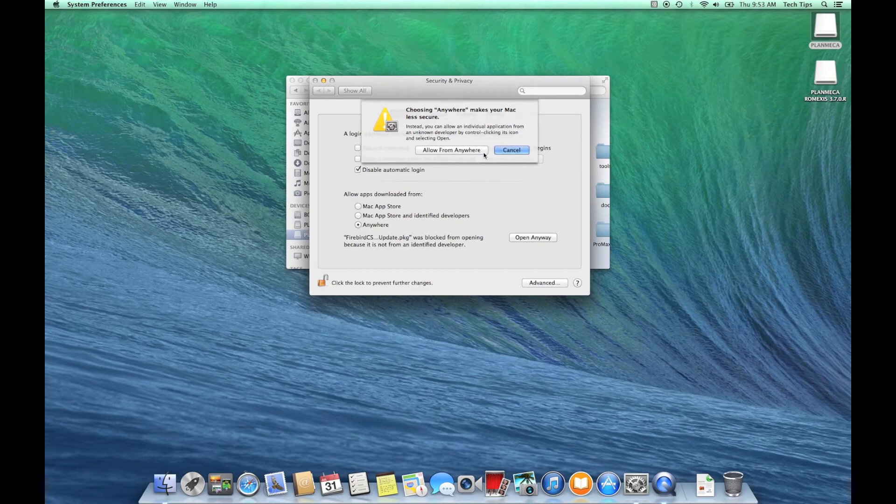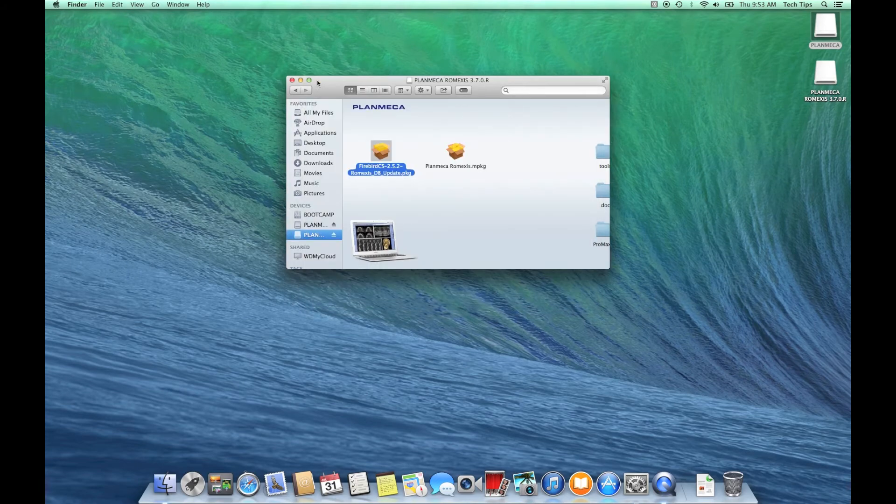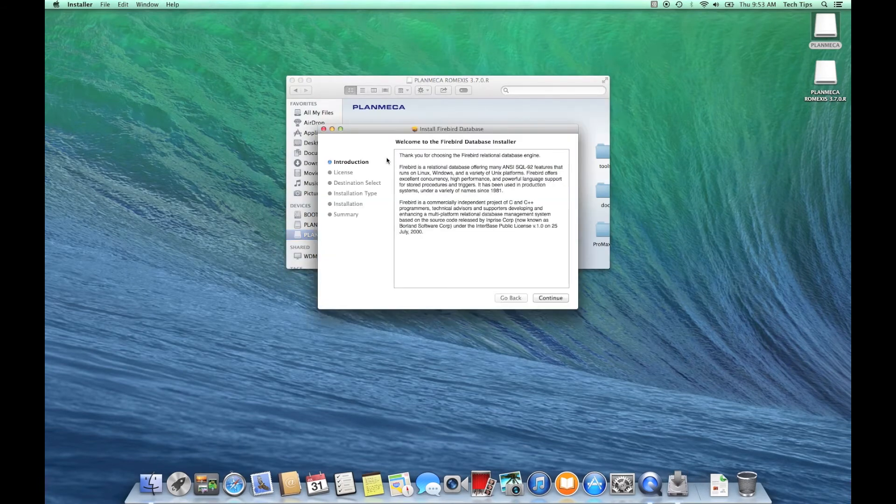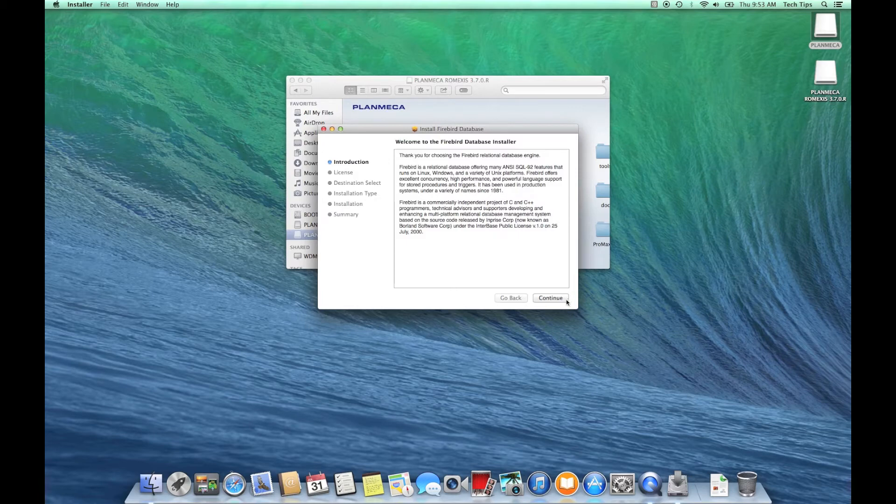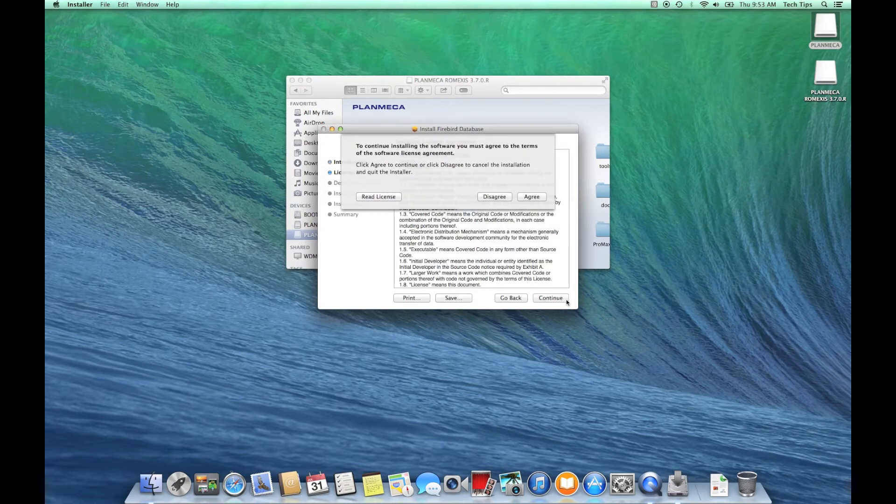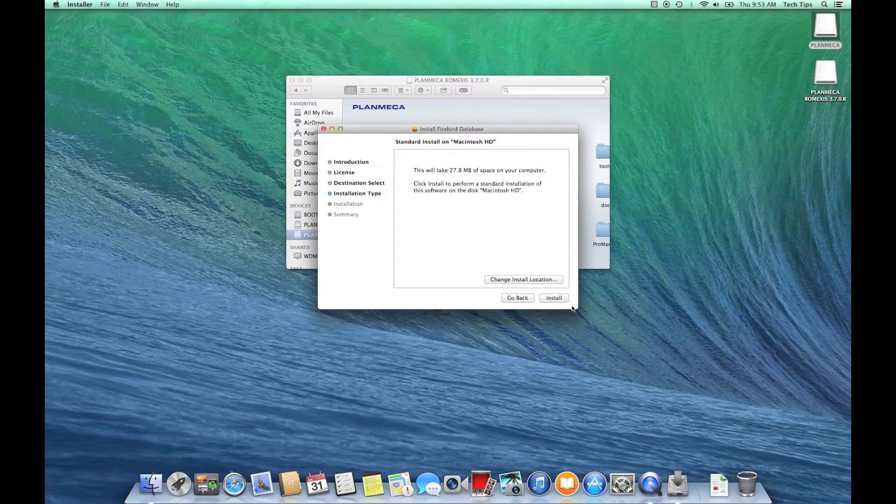Don't stress out about that too much now. We're just going to go through the whole thing start to finish and leave all the components selected just so you can see the process and become familiar with it. We're doing the server style installation with all components, so the first thing I'm going to do is install this Firebird.